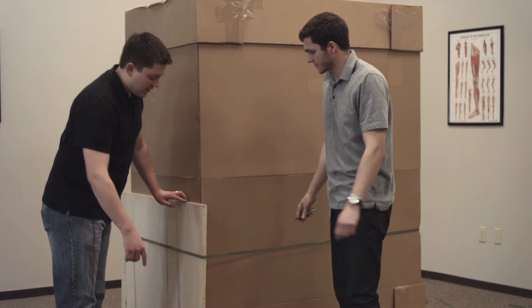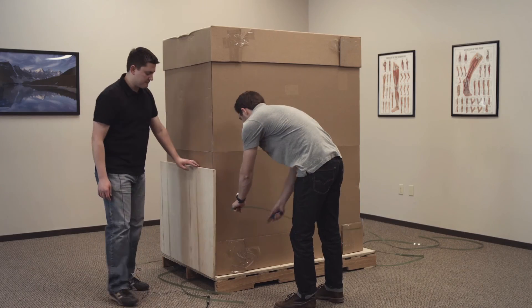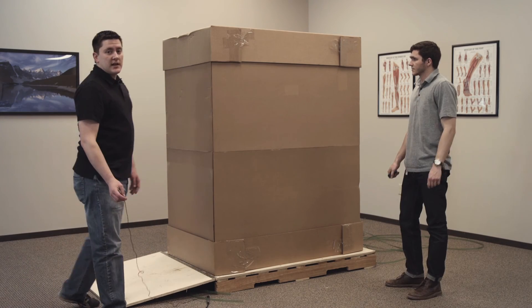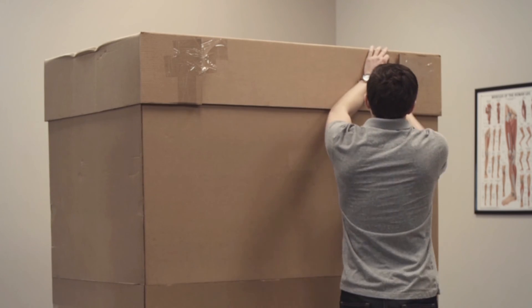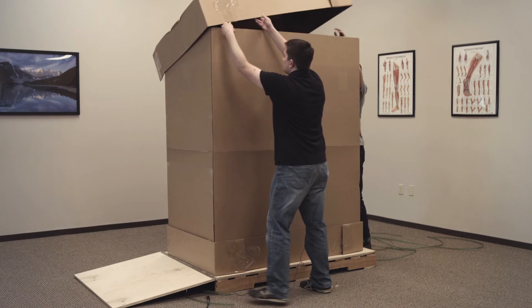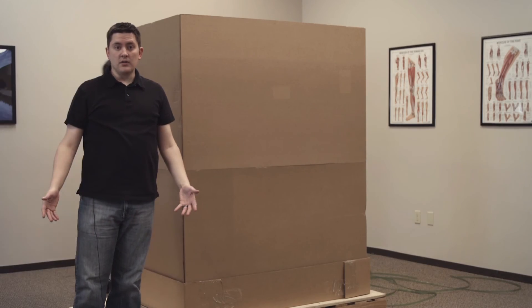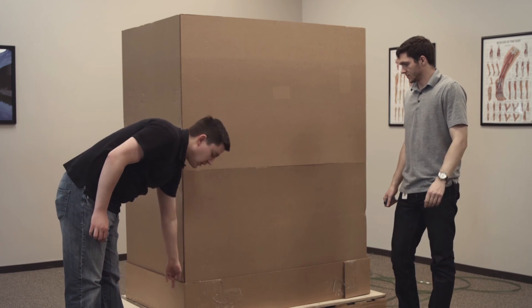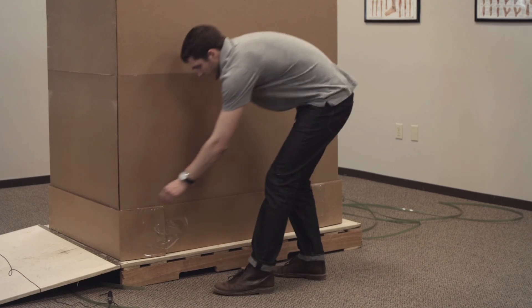The best thing to do is to cut these right at the base, right where the top of this ramp is. There's a third strap that you need to cut right here — we're going to cut it just right next to the crate. Then we can lower the ramp. The next step is to cut the tape that's holding it together; there's tape all the way around these sides. We're going to make sure to get all four sides. Since we have to roll the Bioness Integrated Therapy System off and down this ramp, we're going to have to lower this lip of the cardboard and make some cuts along that part of the cardboard as well.